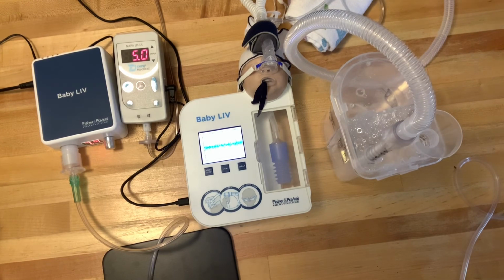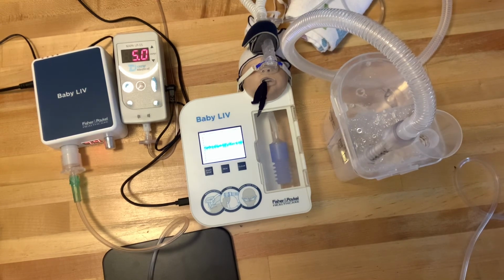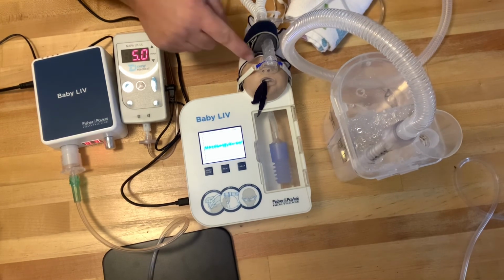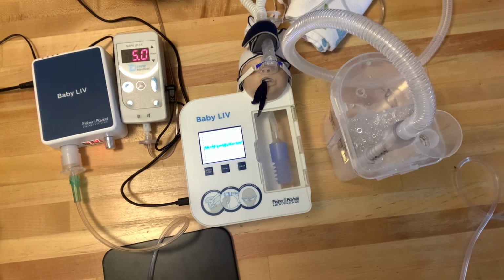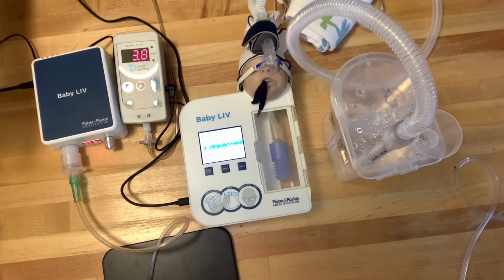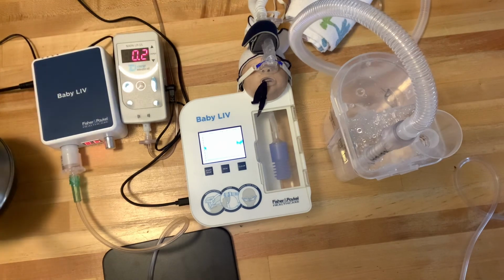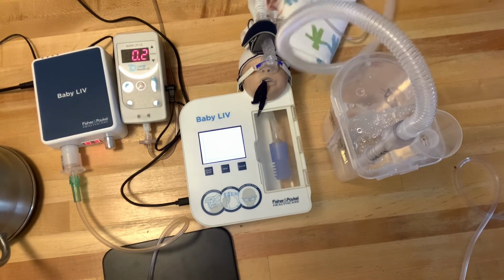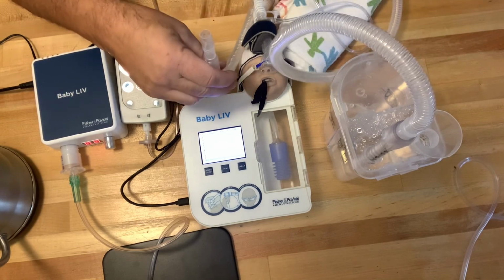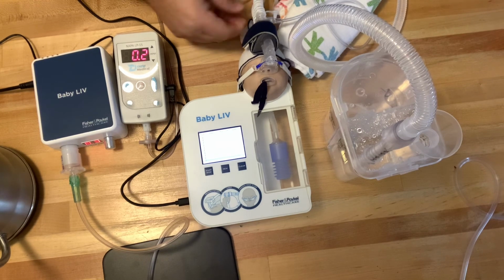So let's simulate what would happen if this expiratory limb started to fill with water because the bubbler is up so high. Does that have an impact on the baby? Well, now we're really going to see why this monitor is so useful to you. I brought a tea kettle with me, and I'm going to take some water and pour it into the expiratory limb, basically filling up the U-bend here. So I've taken water and placed it in here so that the expiratory limb is filled with water.